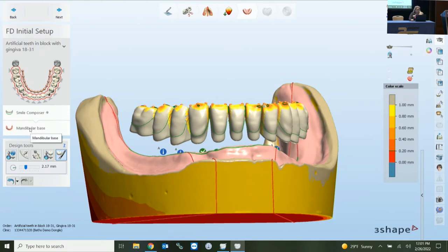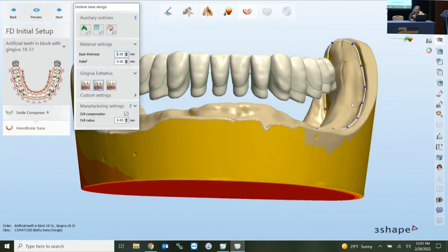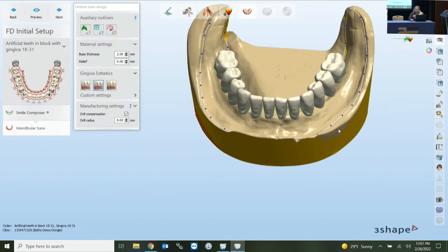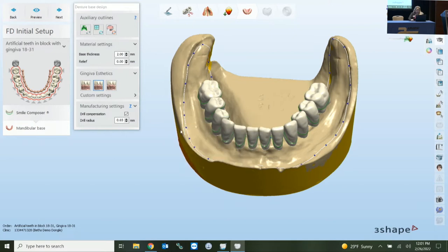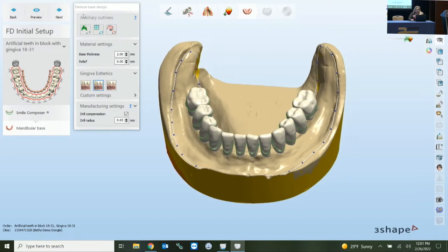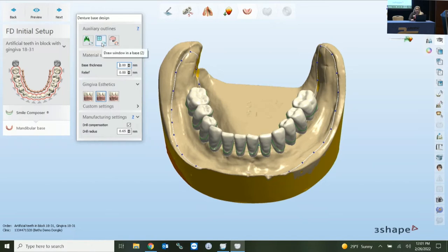Moving to the mandibular base, based on our outline it still gives you the opportunity to adjust your outline here if needed — clicking on the dots or the full menu when you right-click. Just like when we initially drew the outline. In the top left window, this is your draw base outline — it's already there, but you can delete and reapply if needed. There's also an option for a window if you need to put one in.